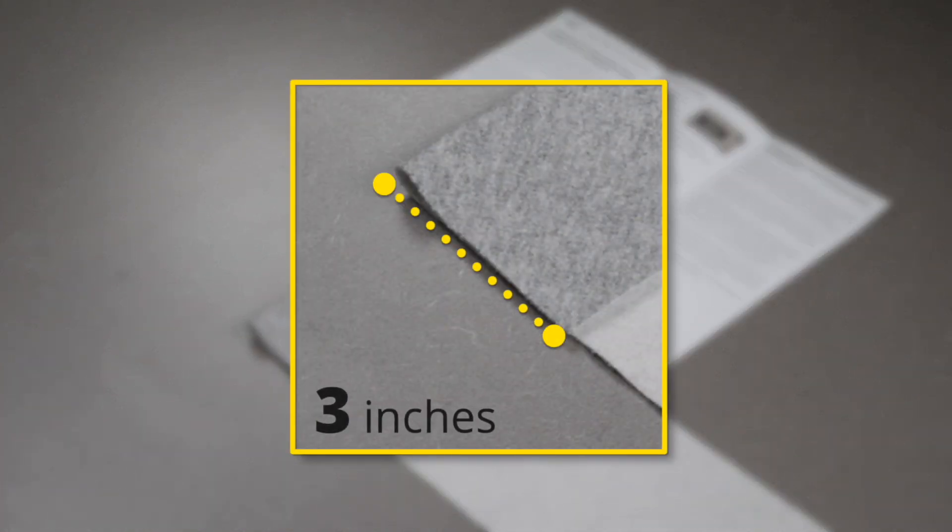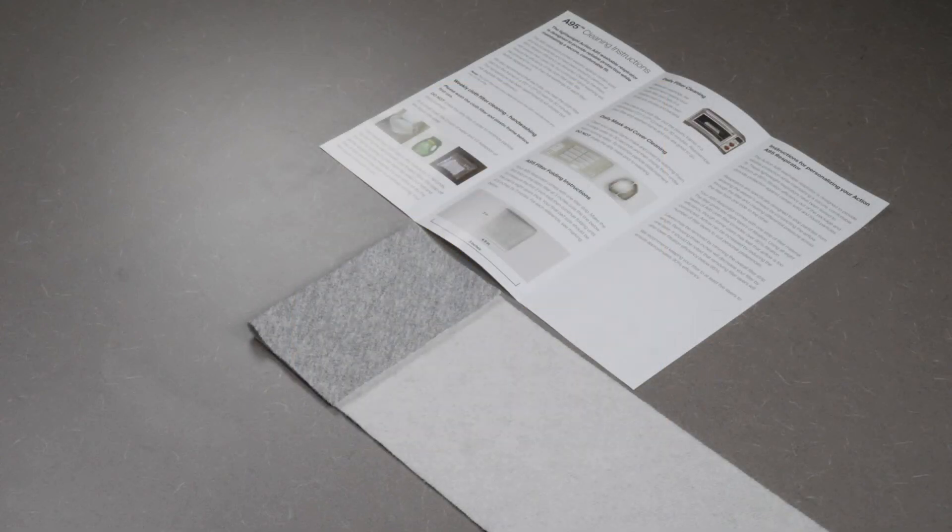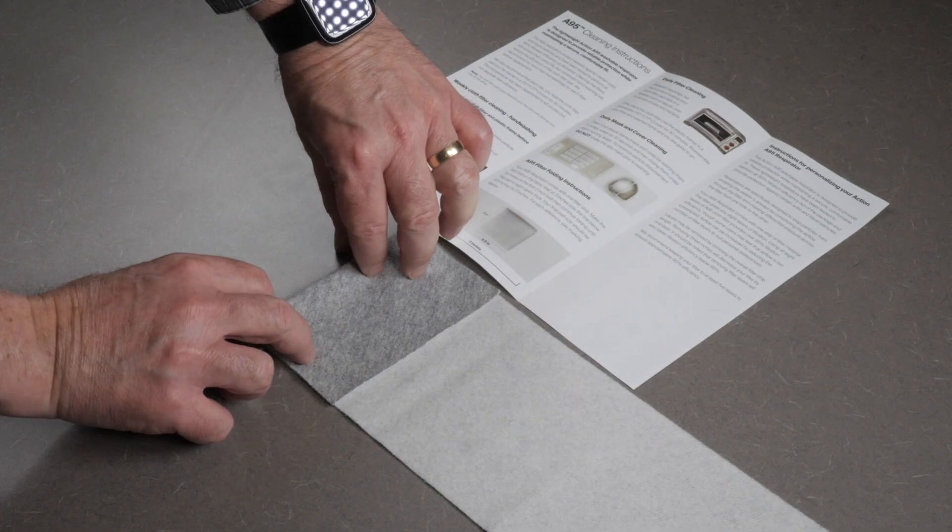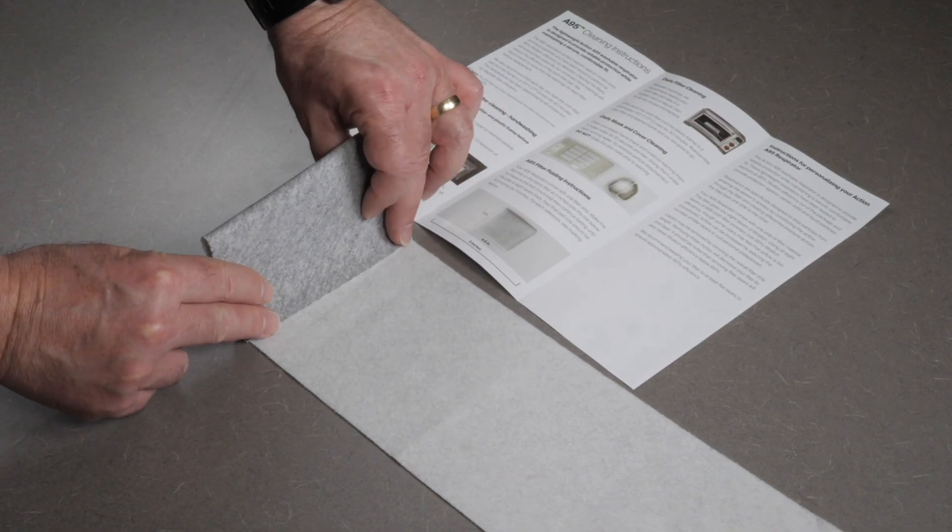Continuing to roll while folding to the end of the filter material will achieve at least eight layers.